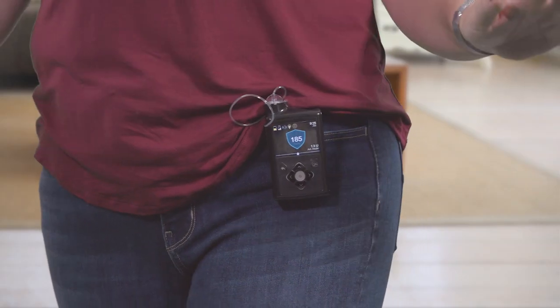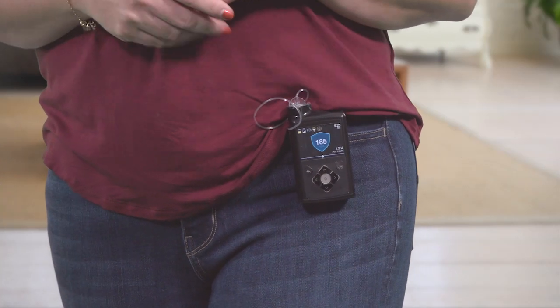No matter who you are, the system has three reasons that will ask for calibrations: either you've gone 12 hours without calibrating and the system needs one to keep giving you data, auto mode needs a calibration to continue dosing, or the system needs an extra calibration to ensure it's accurate.